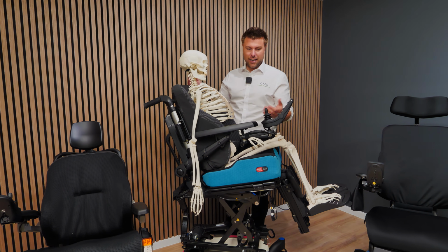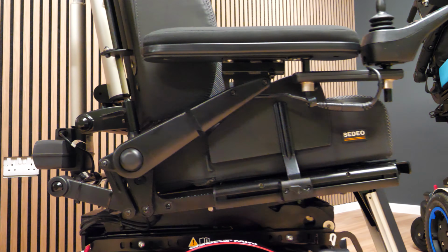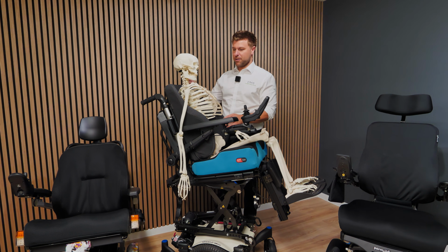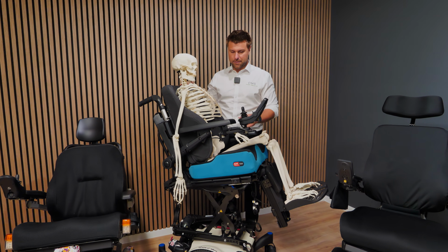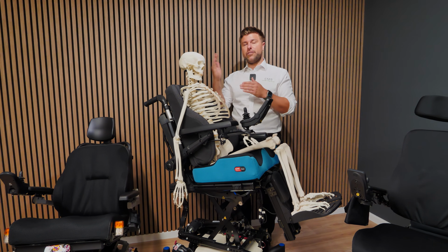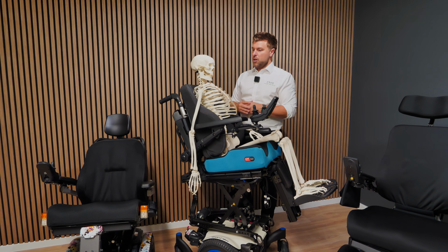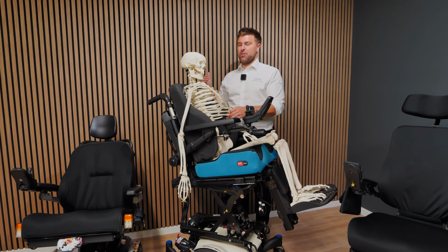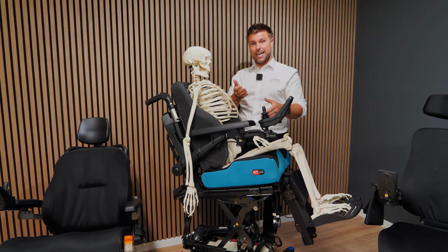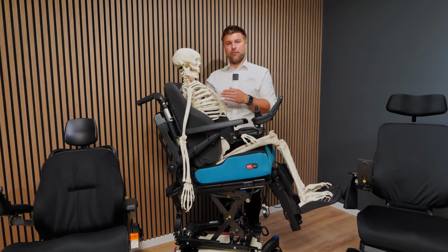In, let's say, a 90-degree backrest and hip angle, you'll have good contact throughout, and the backrest will be supporting you appropriately. So you'll have good lateral stability. As soon as you start changing that backrest angle and therefore hip angle, what happens then, without a biomechanical anti-shear, so without the backrest moving down and following your profile, is the backrest moves away from you.